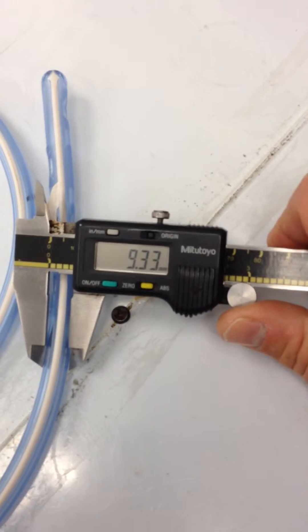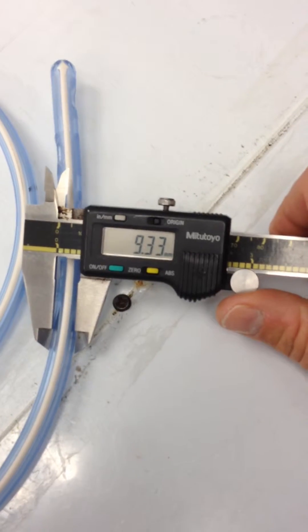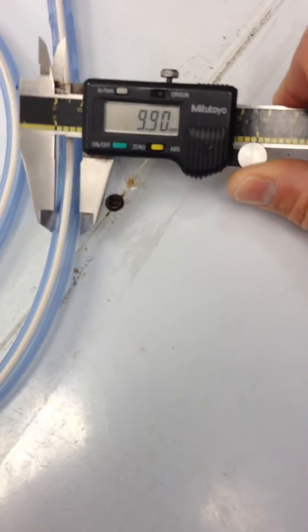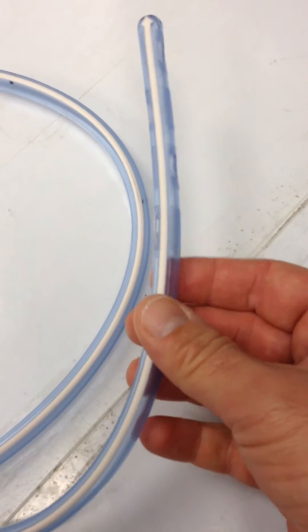And right now it's smaller than, it's about 28 French right now under suction. So this tube very rapidly collapses.